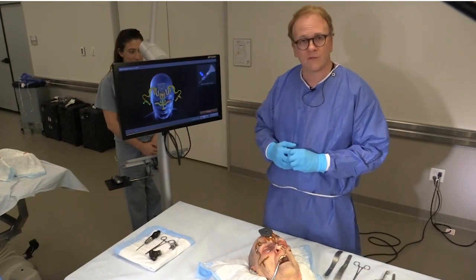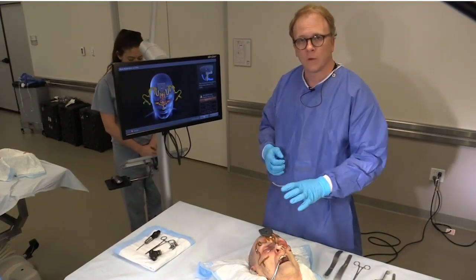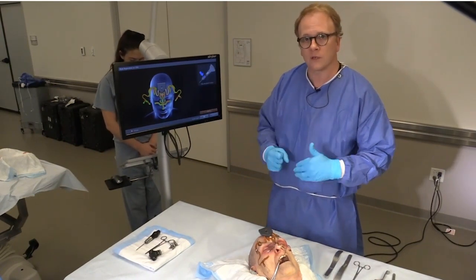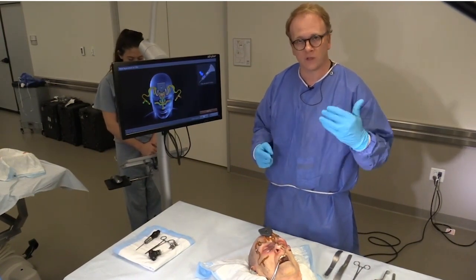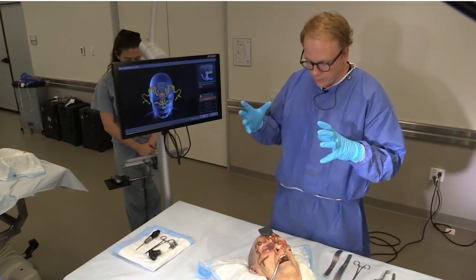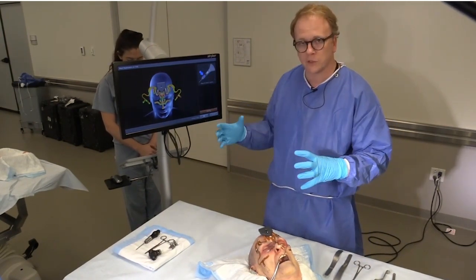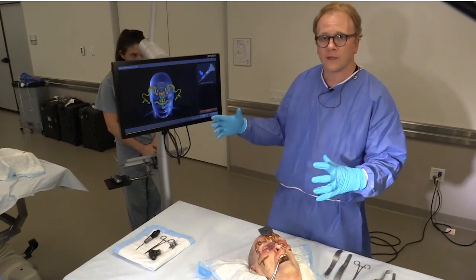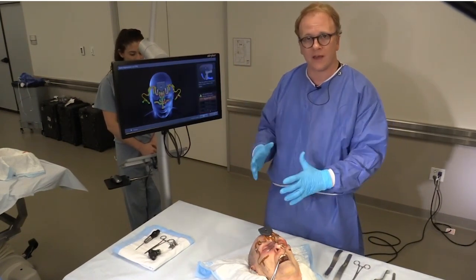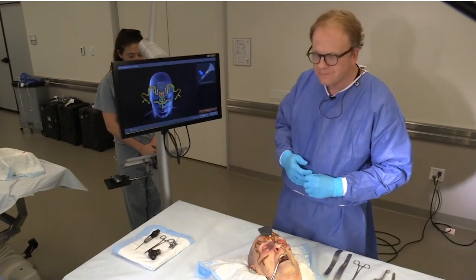You'd have a couple of options: one would be to use bone data, which would be very accurate because bone won't swell. Or you could get a more recent, more contemporary CT scan which will be a better match for the data sets, giving you a better registration. The higher the quality of your registration, the higher the accuracy of your navigation and the better your case will proceed.